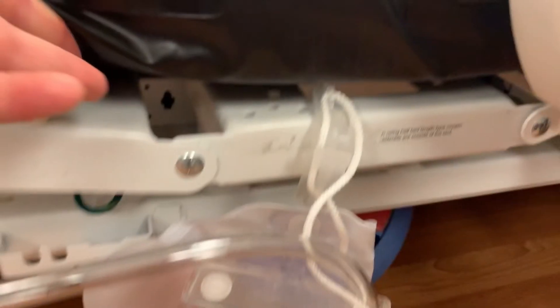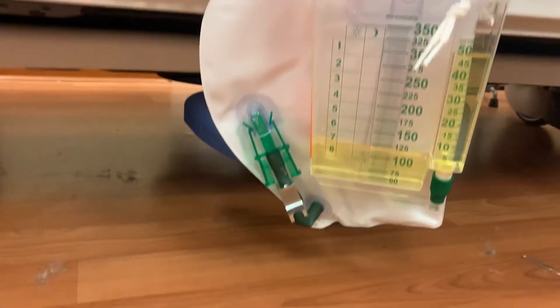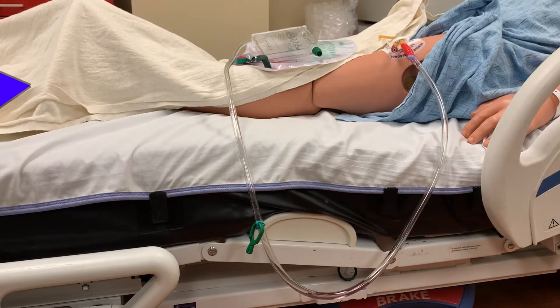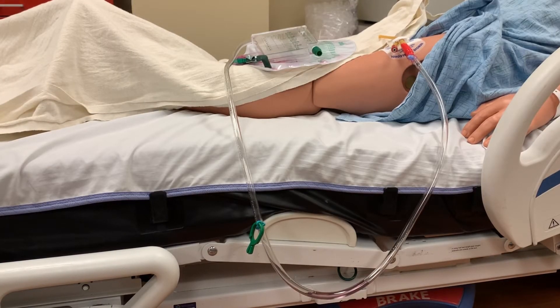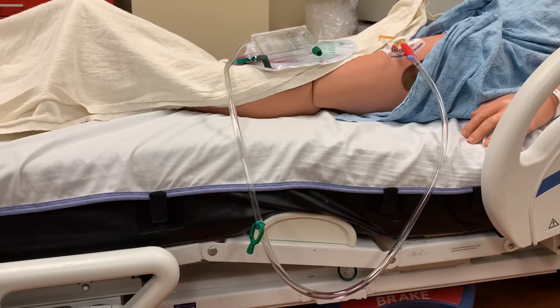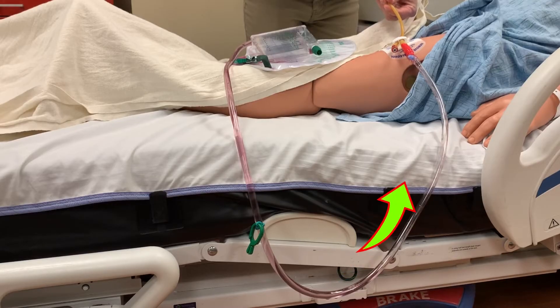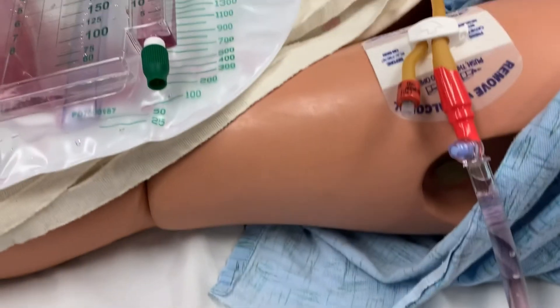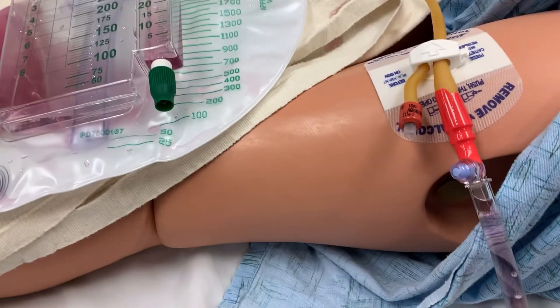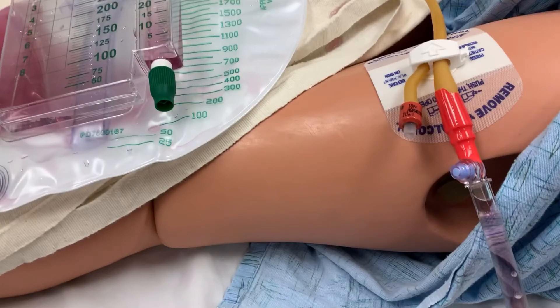The Foley bag must always be below the level of the patient. This allows urine to drain into the Foley bag by gravity alone. You have probably seen Foley bags being placed on top of patients during transport. This is unfortunately fairly commonplace, but doing this is a significant risk factor for the development of a CAUTI. Urine has no downward pull to drain away from the patient, and the urine can easily back up and make its way back into the patient's bladder. Not only can this lead to bacterial infection, but it can also cause retention issues as well. Foley bags must always be kept below the level of the patient, even during transport.